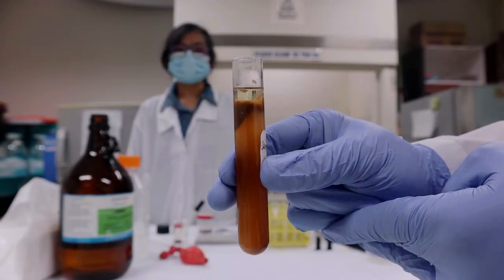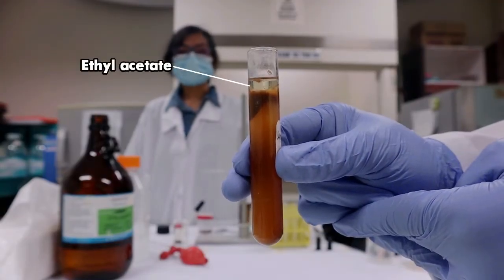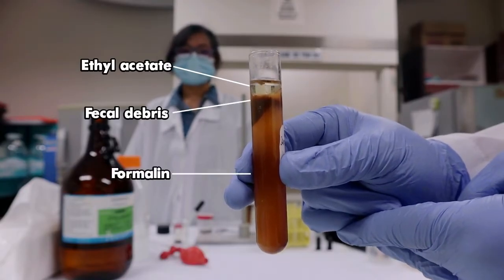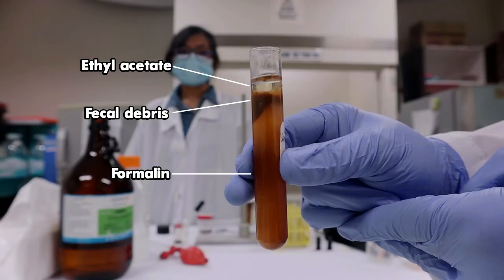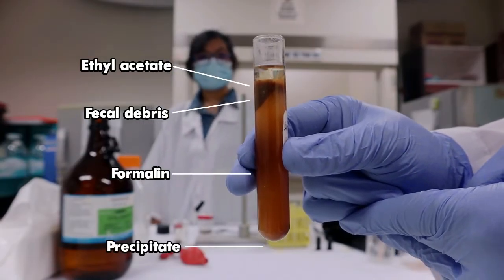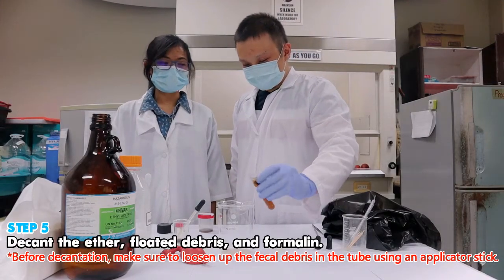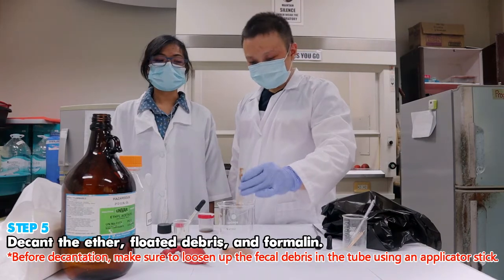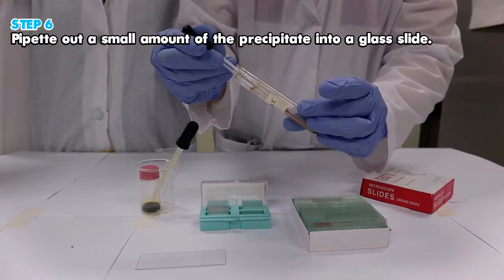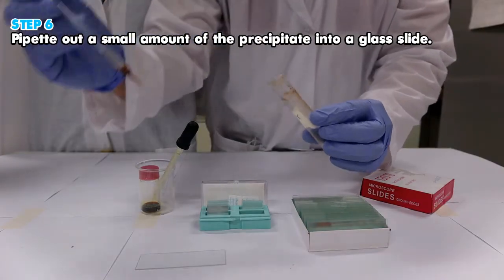After centrifugation, the tube will contain 4 layers. The ethyl acetate on top, debris on the 2nd layer, the formalin on the 3rd layer, and the precipitate on the bottommost layer, which contains the parasite's egg or ova. Decant the ether, debris, and formalin, leaving the precipitate. Pipette out a small amount of the precipitate and transfer it onto a glass slide.